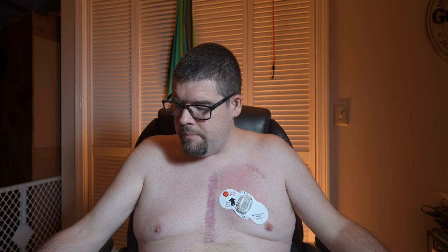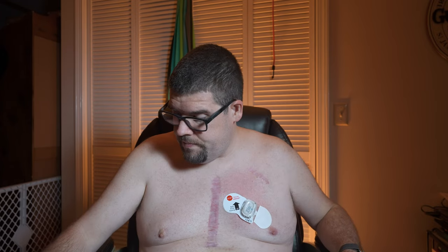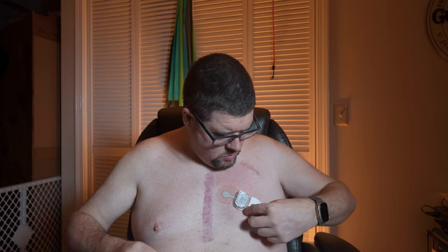Is it okay if it's touching my nipple? All right, next step: peel the labels starting with one and then two. There's label one. This just doesn't feel right. All right, then label two — I think that white backing was supposed to come with it.